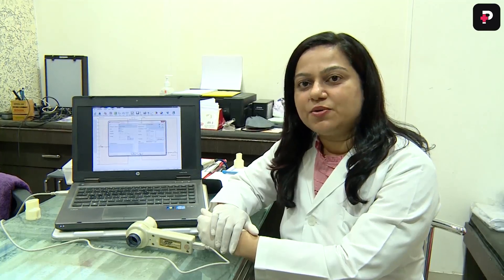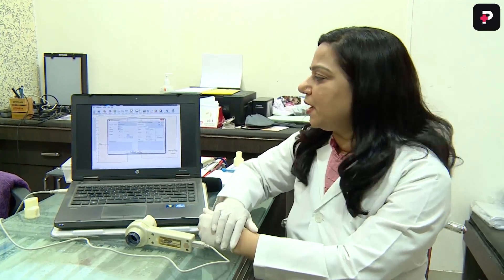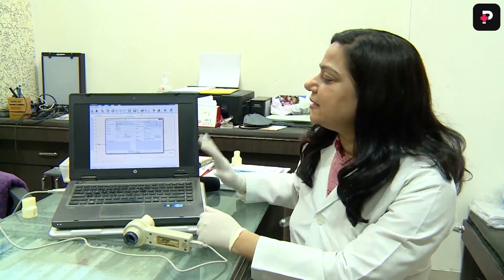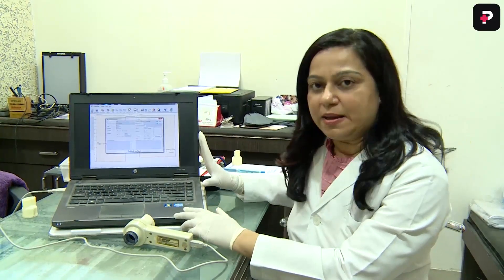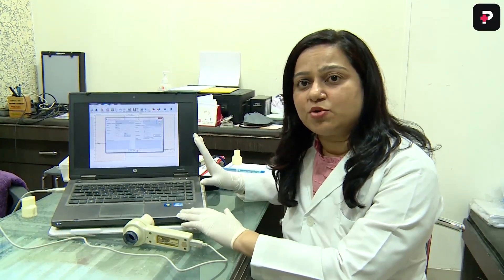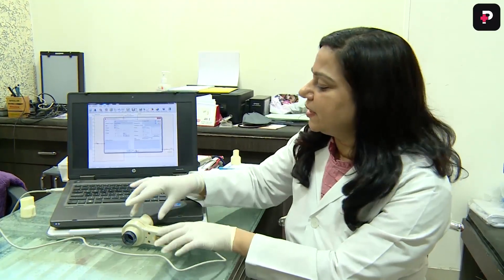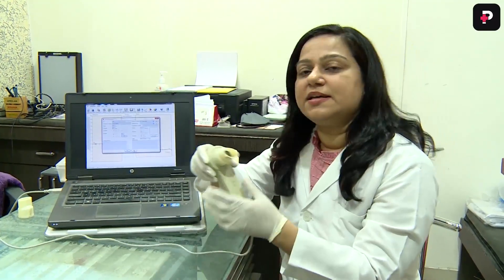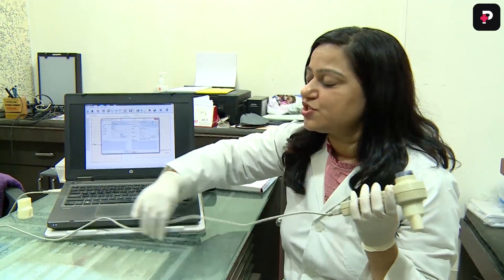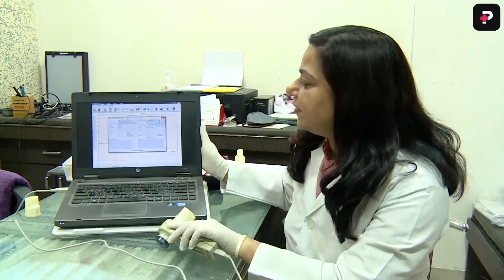In this video, I will explain to you about computerized spirometer. This is a laptop in which computerized spirometry software is installed. This is a mouthpiece which is attached by a cord to the laptop.